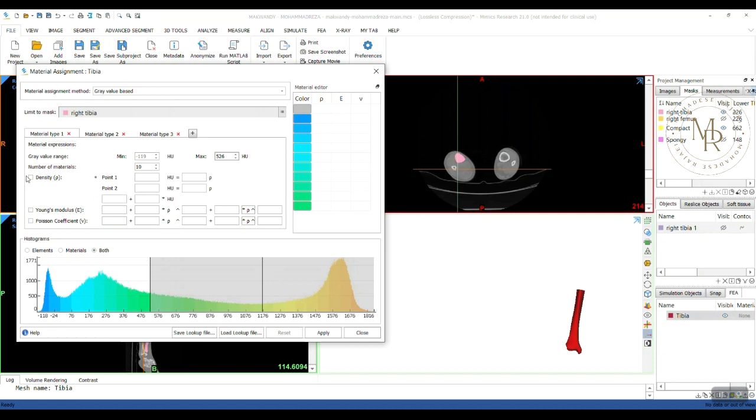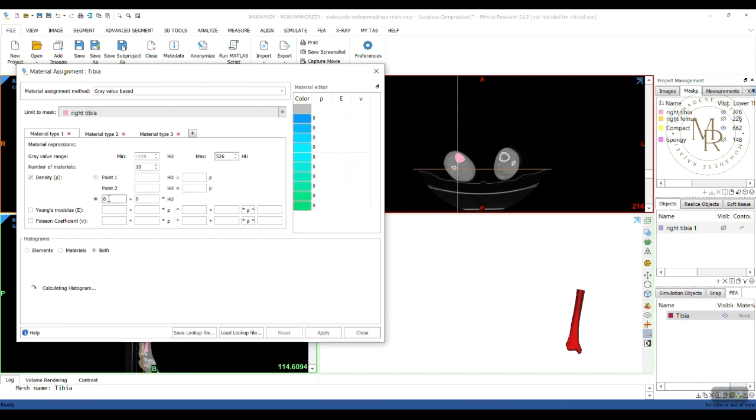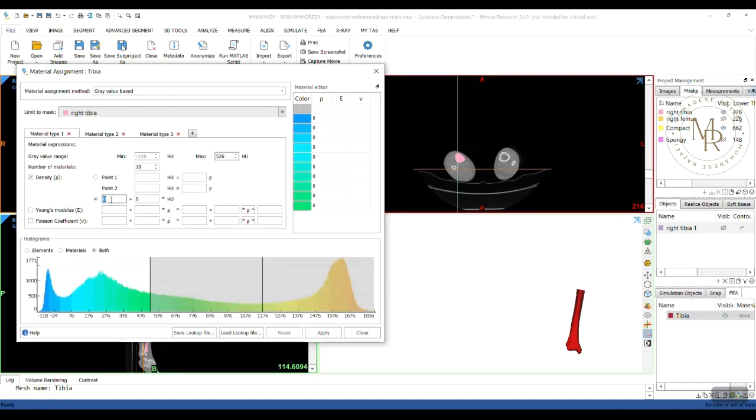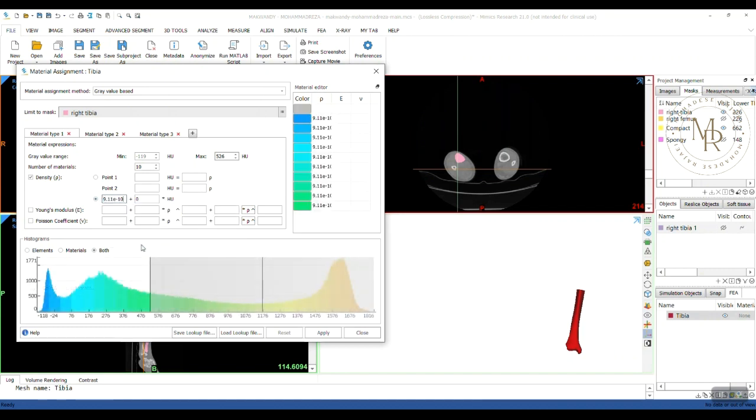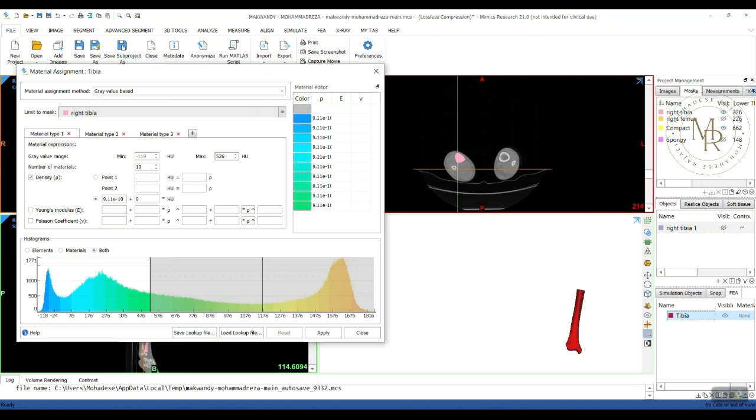By clicking on density, I'll be able to give the value of that. Please pay attention to the units. Since I'm using SI millimetric units in my simulation, so I should convert all of my values to that system. Here, for density, I'm using ton per millimeter cube. And for Young's modulus or E, I'm using megapascal.